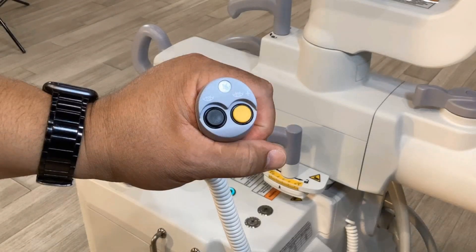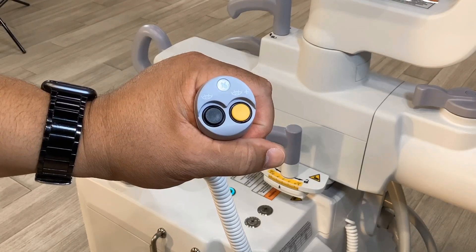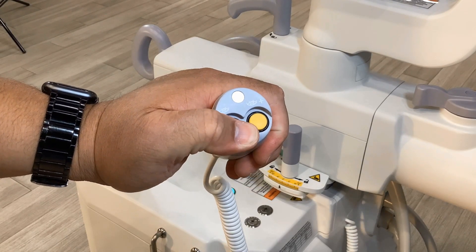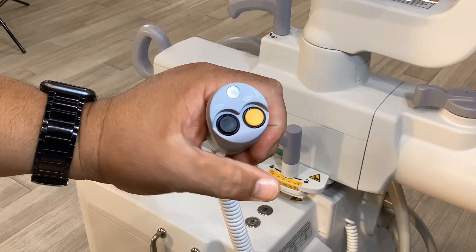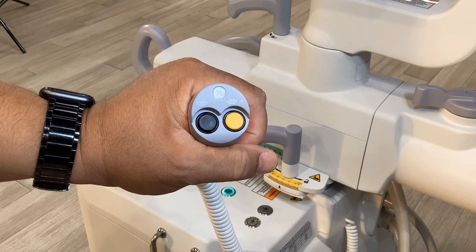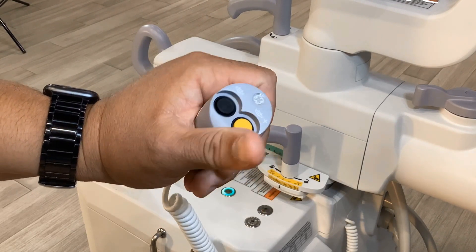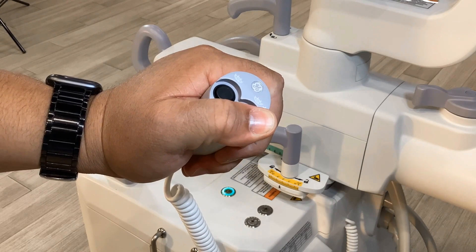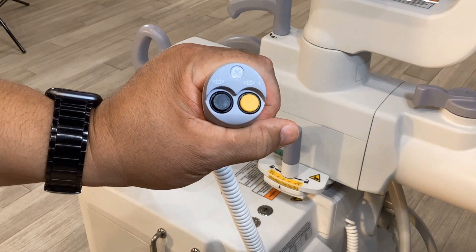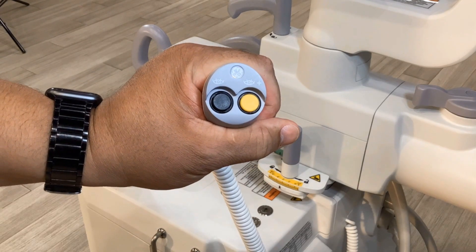The hand switch. Press the left black button labeled with the eyeball to produce normal fluoroscopic images. Press the right yellow button labeled eyeball plus to produce high level fluoro or digital spot images.